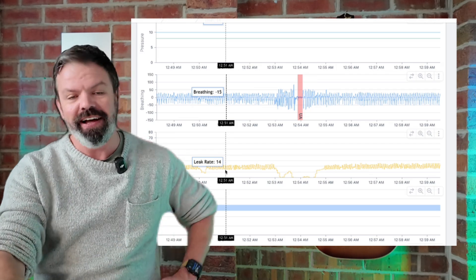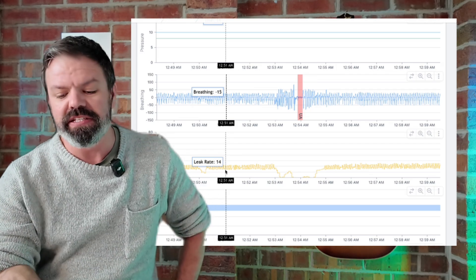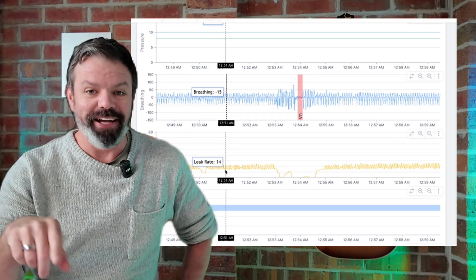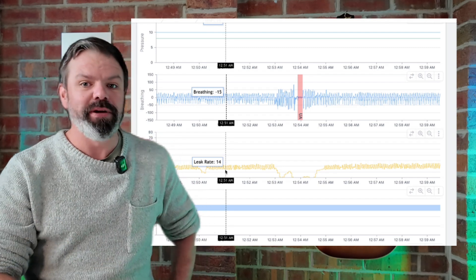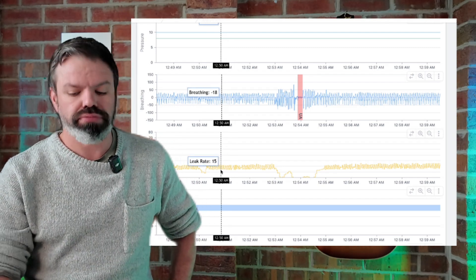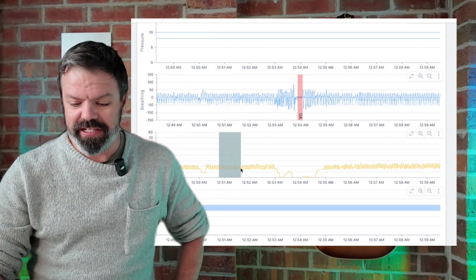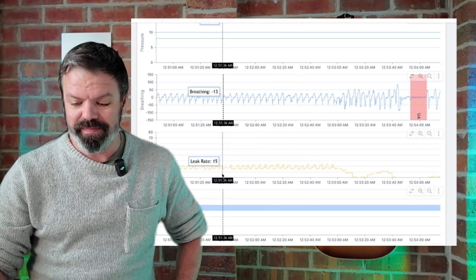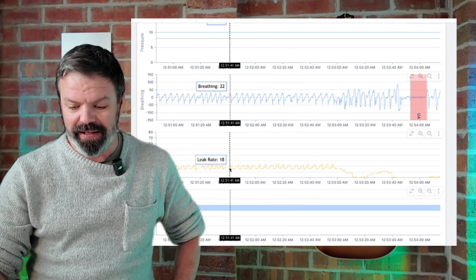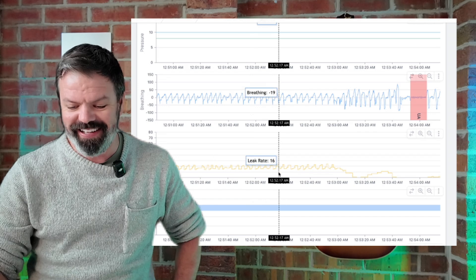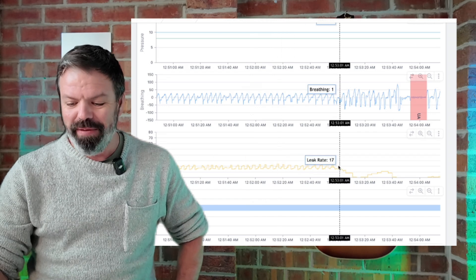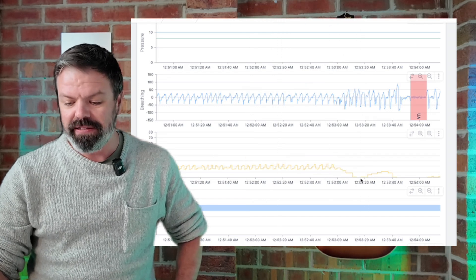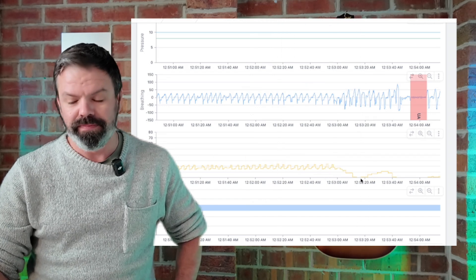Now this is really interesting here because I think this is motorboat leak, like that guy before where he's going, because you can see the little oscillations. See the little oscillations? But then it drops off back to zero.